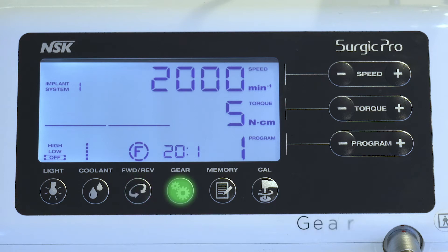Use to set the gear ratio of the attached handpiece before use. Press the same key until the LCD display indicates the correct gear ratio of the handpiece. For example, options 1 to 1, 1 to 2, 1 to 3 or 20 to 1.